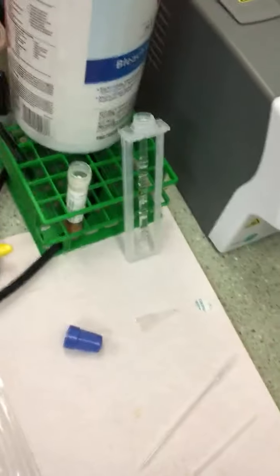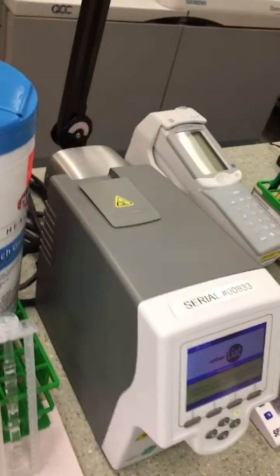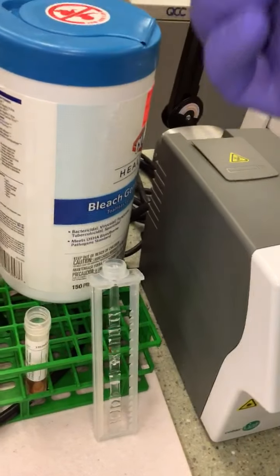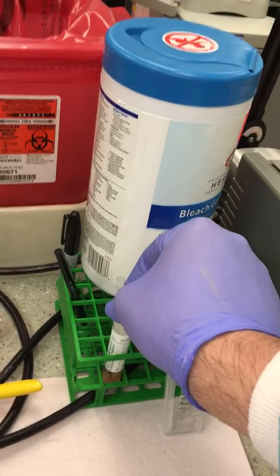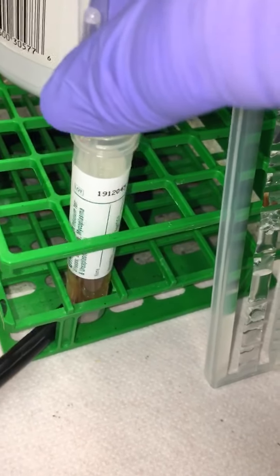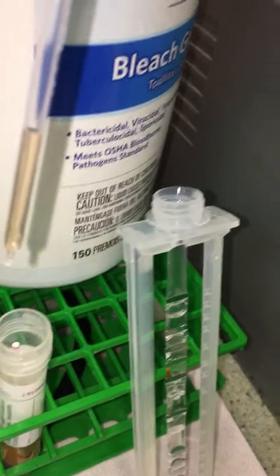Like I said, I do have only one hand, so I'm trying to do this the best way I can. If you lose visibility for a second, I'm sorry. But here I have my pipette. This is a sterile pipette, came vacuum sealed, and I'm going to grab my patient sample, which is in the bottom here. This has already been mixed and vortexed, received to us in the laboratory with the nasopharyngeal swab. You can see the liquids in there.